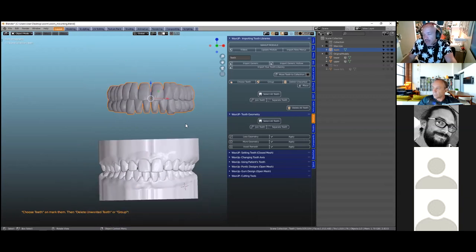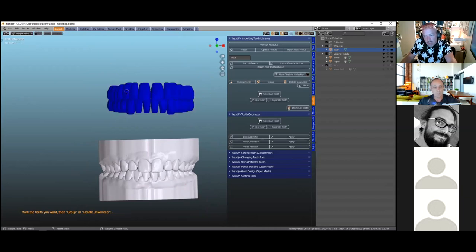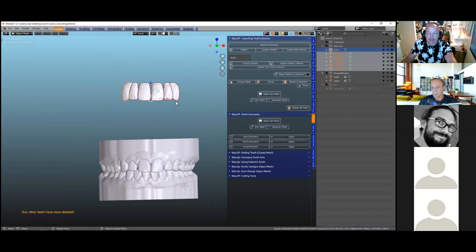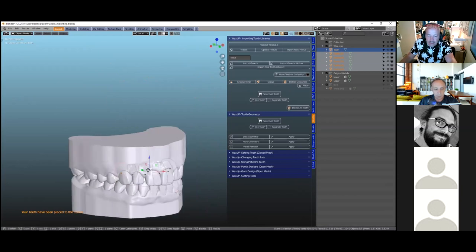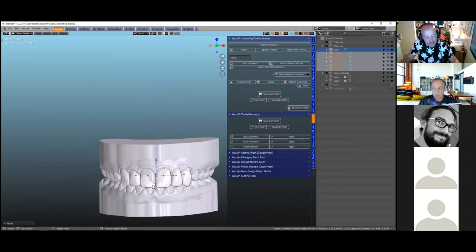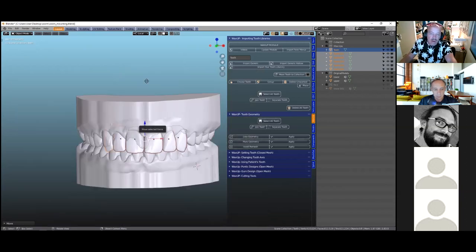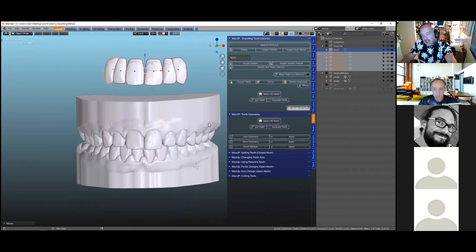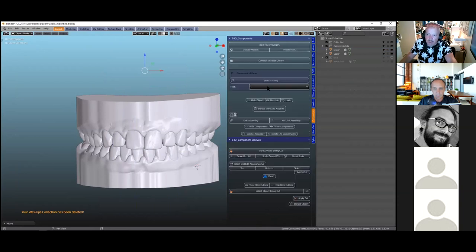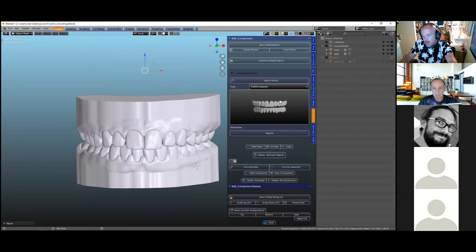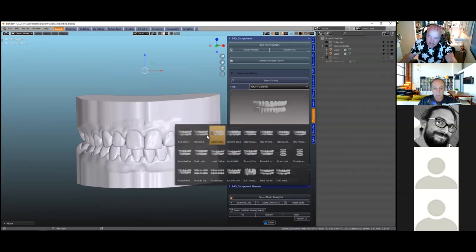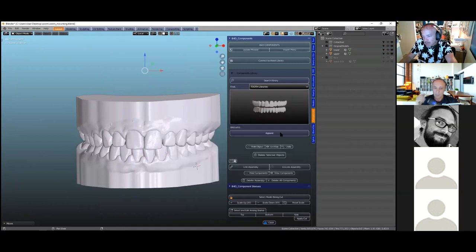We'll click on the 'choose' button, draw a color on it, click 'delete unwanted' to remove everything else, and then 'place all' — this places the teeth more or less where we want. If the shape isn't suitable, we can delete these teeth and go into the component module to look for other teeth. So let's say we're going to use a different set of teeth — solid — and append those into the scene. We'll just wait for them to load in.